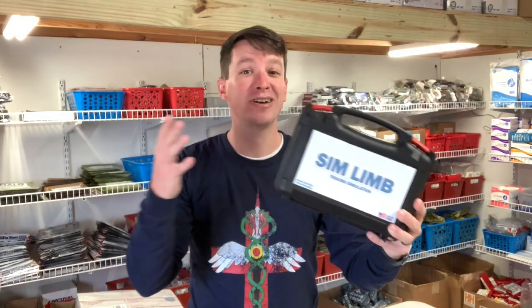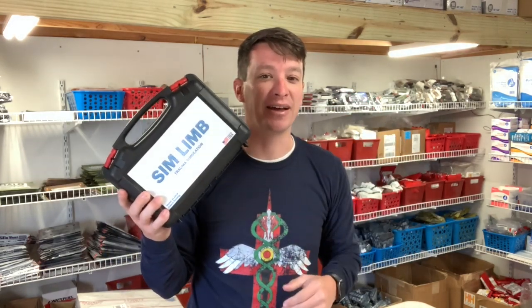So today's item that we're going to review for you goes right along with that training aspect. This is a really cool simulator that I like. We've been using it for a little bit here, and it's made in the USA. So you guys should be super happy about that.